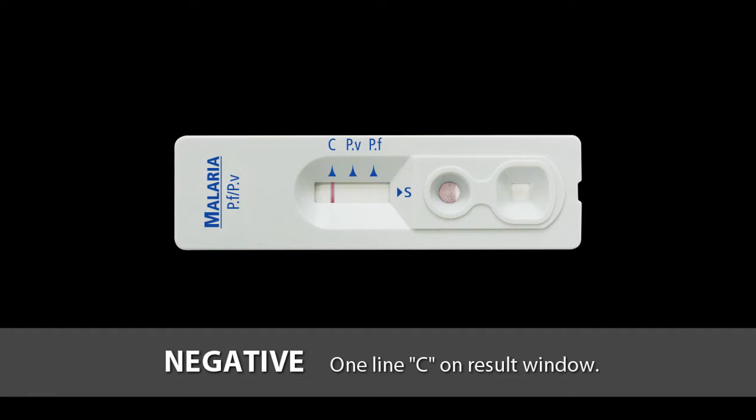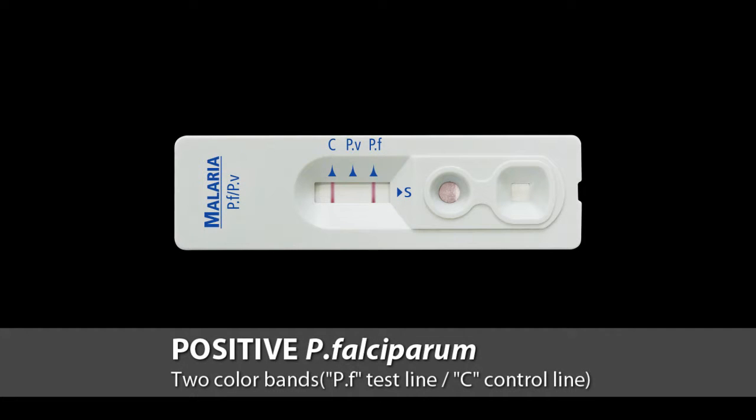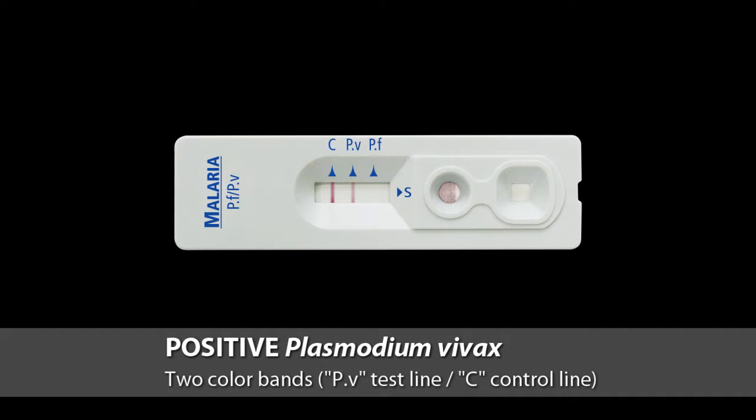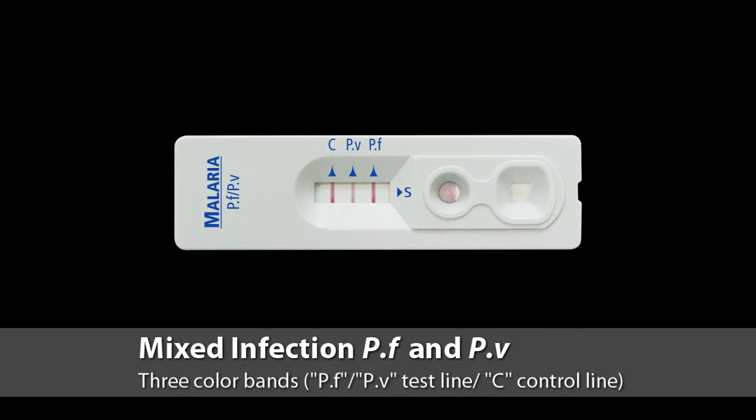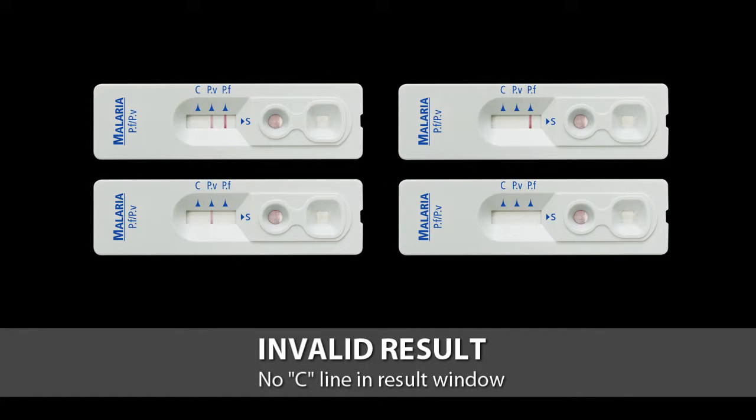Only one line at C on the result window means negative. 2 color bands at the PF and C lines mean Plasmodium falciparum positive. 2 color bands at the PV and C lines mean Plasmodium vivax positive. Also, you may see 3 color bands at the PF, PV and C lines, which means mixed infection. If no line appears near the letter C, conduct the test again with a new test device and new disposable specimen loop.